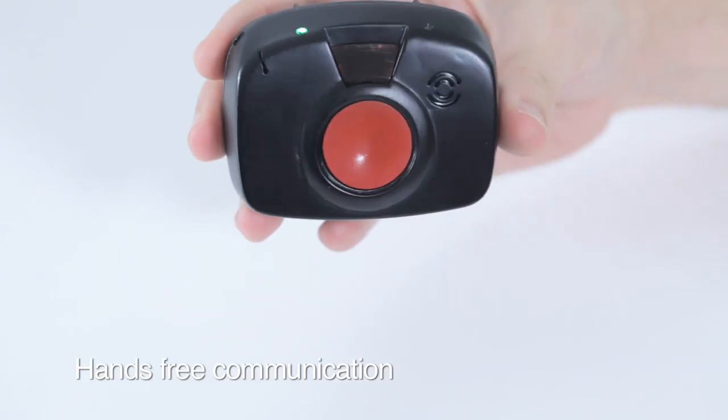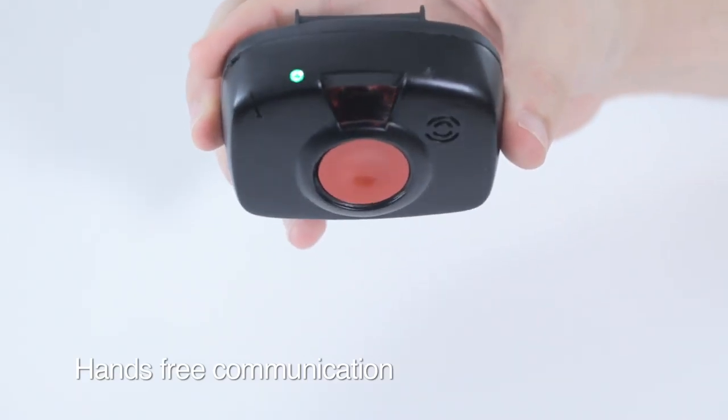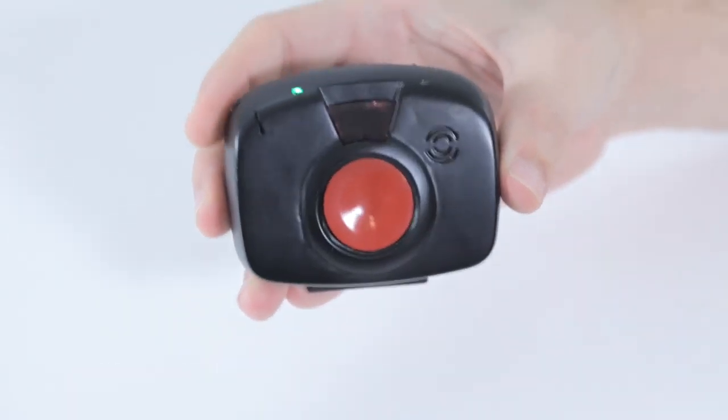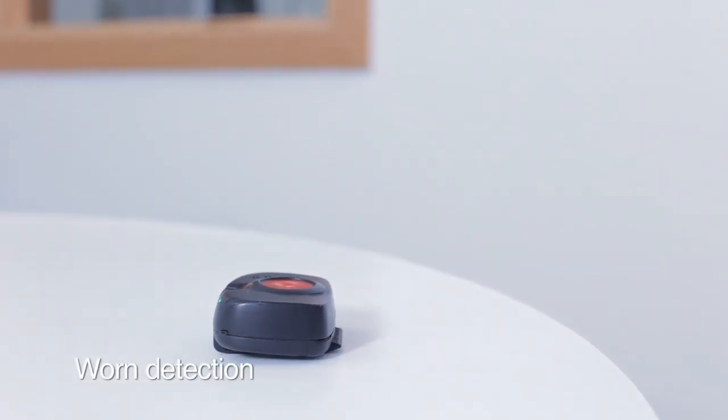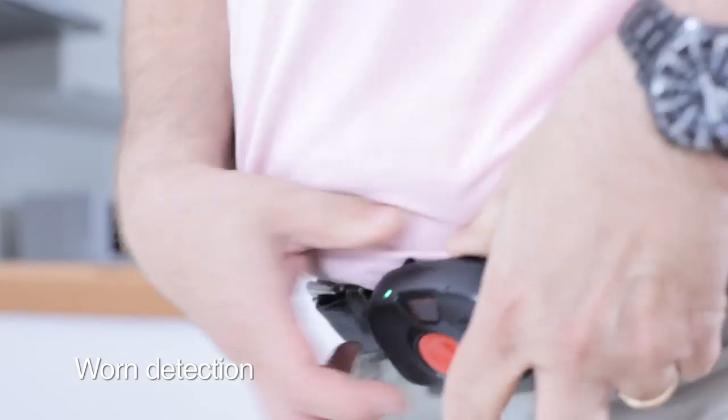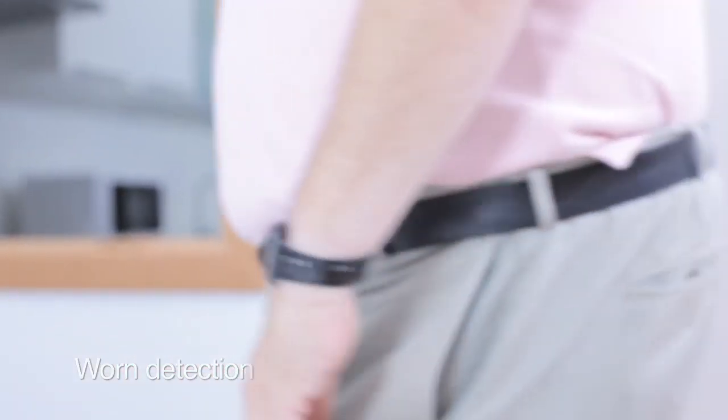It has a vibrating system and a loudspeaker and microphone for audio hands-free communication. The system also detects when the user is wearing the device or not and informs the call center of this fact.